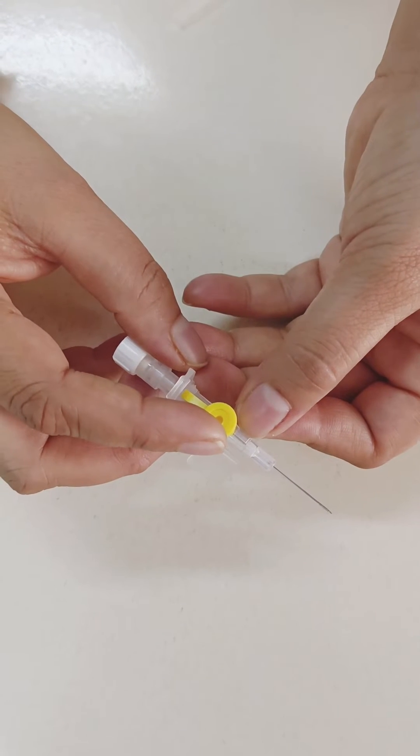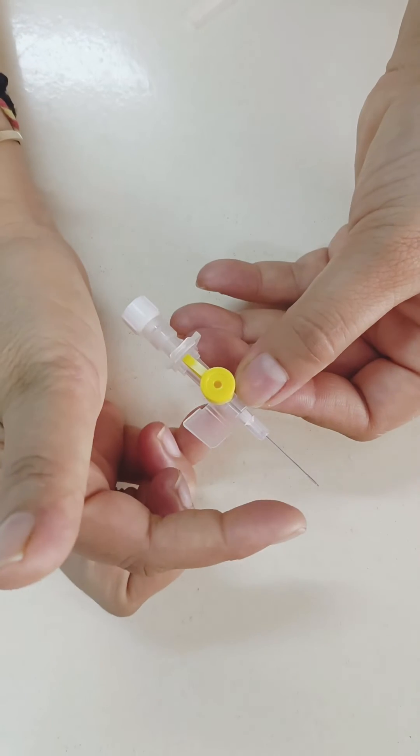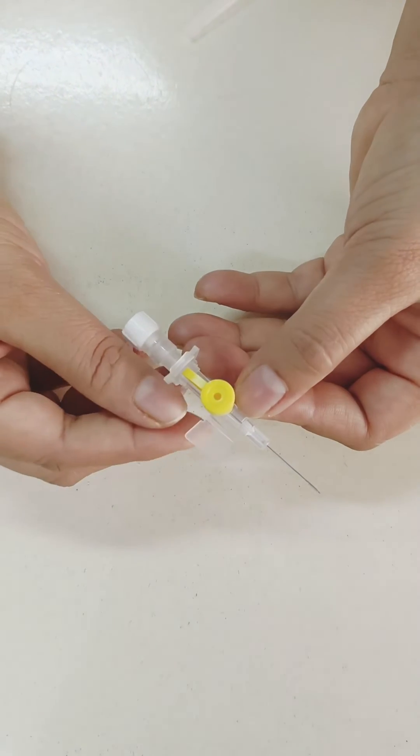This is injection port cap. It is of different color according to external diameter, length and flow rate.